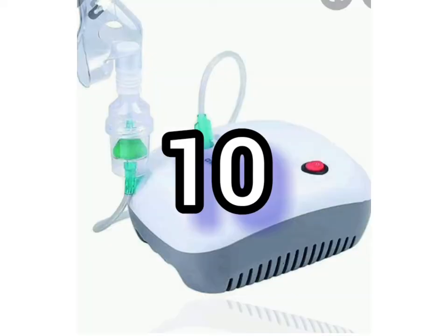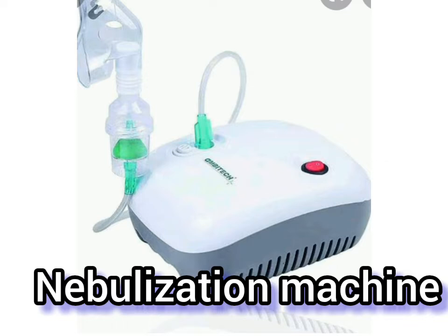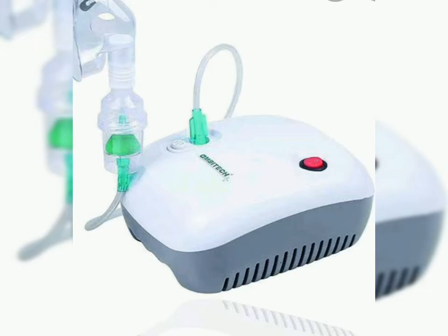Number ten: the nebulization machine is a most important ICU equipment. Using the nebulization machine, we can easily administer nebulized medication to the patient for respiratory treatment.